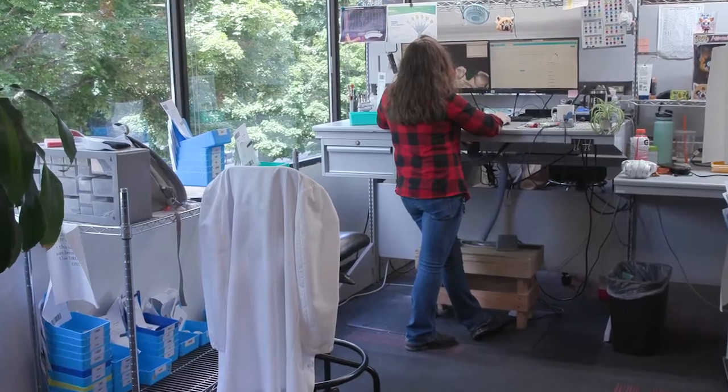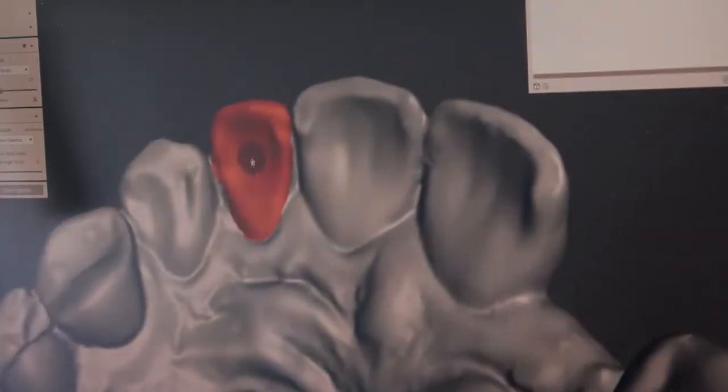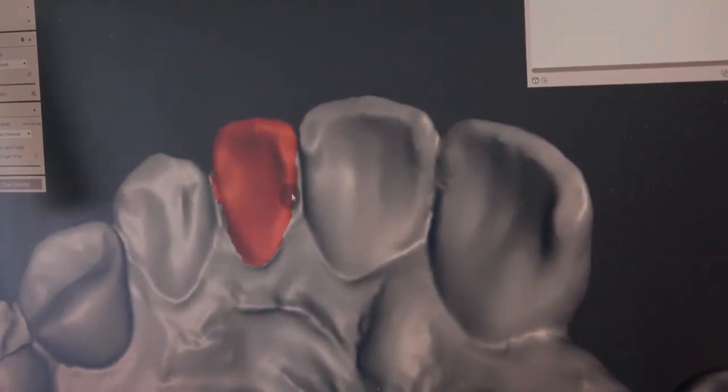With the 3D Pontic teeth, I can completely match the other teeth. It'll look way more natural. Nobody else is going to have these teeth.